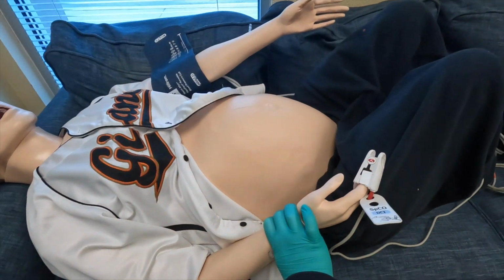As for circulation, bilateral pulses at the carotid and the right radial sites can be activated with slight pressure and a slow release. Please understand the location of the radial pulse, and pulse locations must be soft. Pulses cannot be felt over hard plastic locations. It's perfectly acceptable to ask your partner to verify the presence of pulses after or while you are checking.